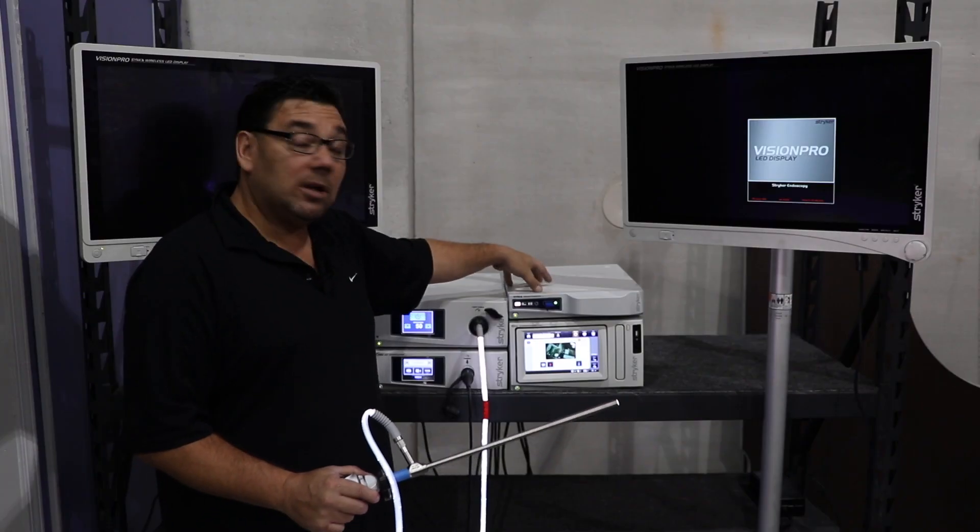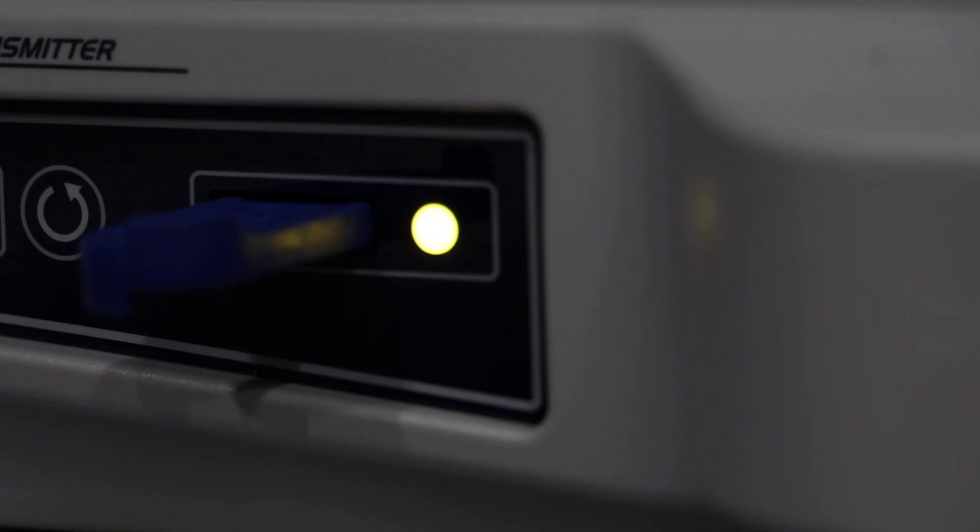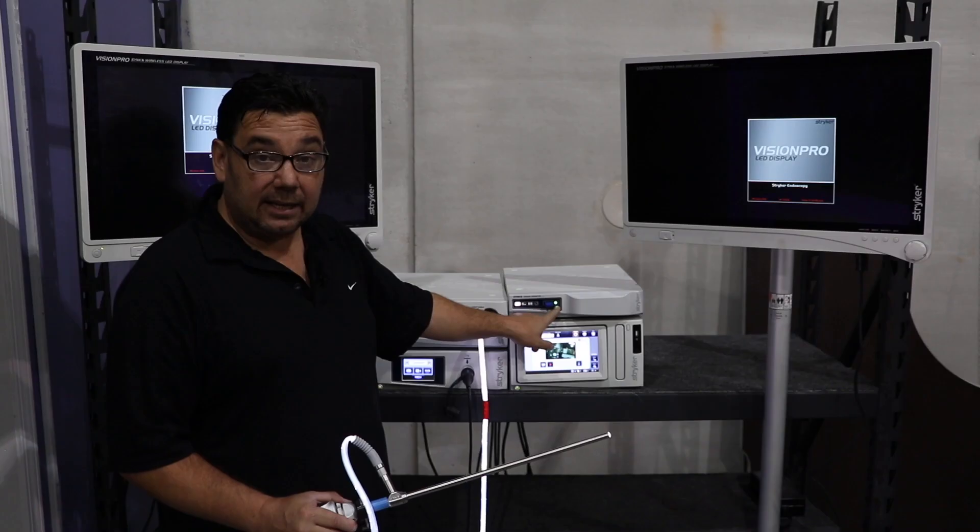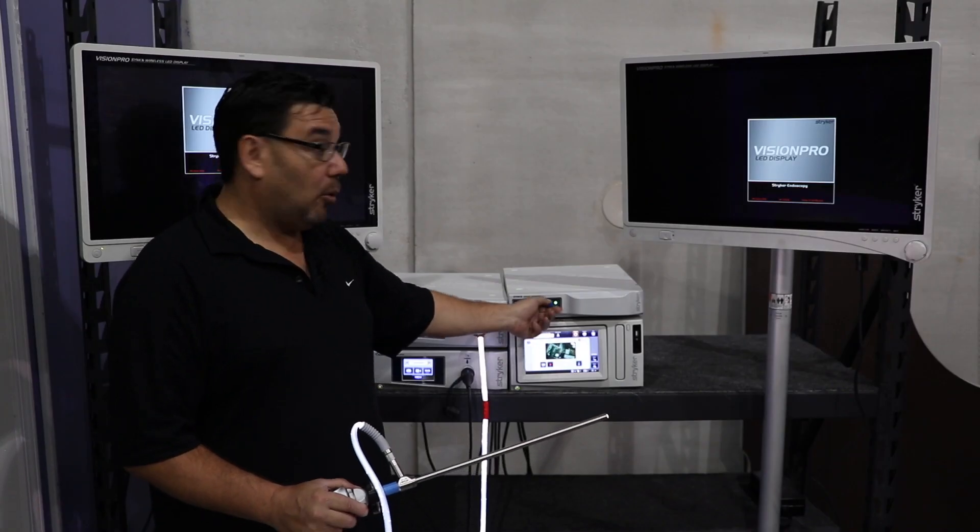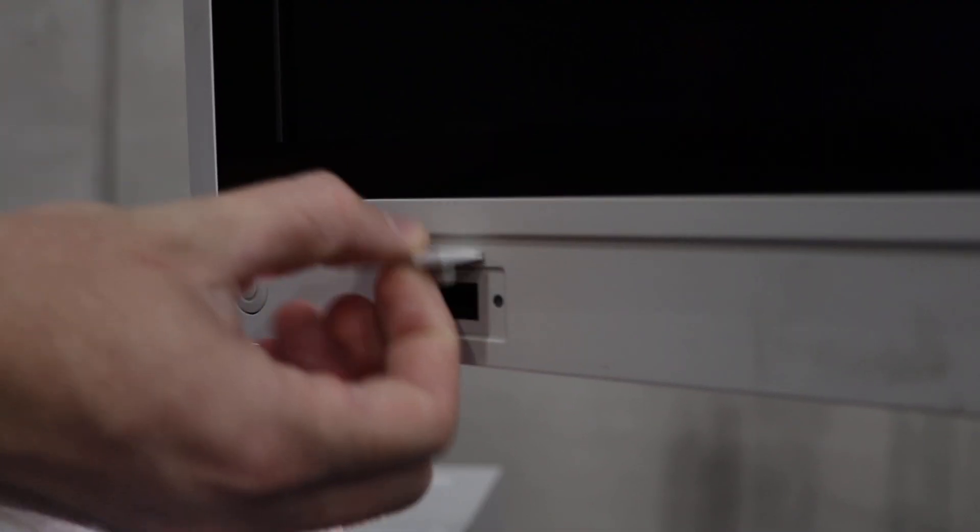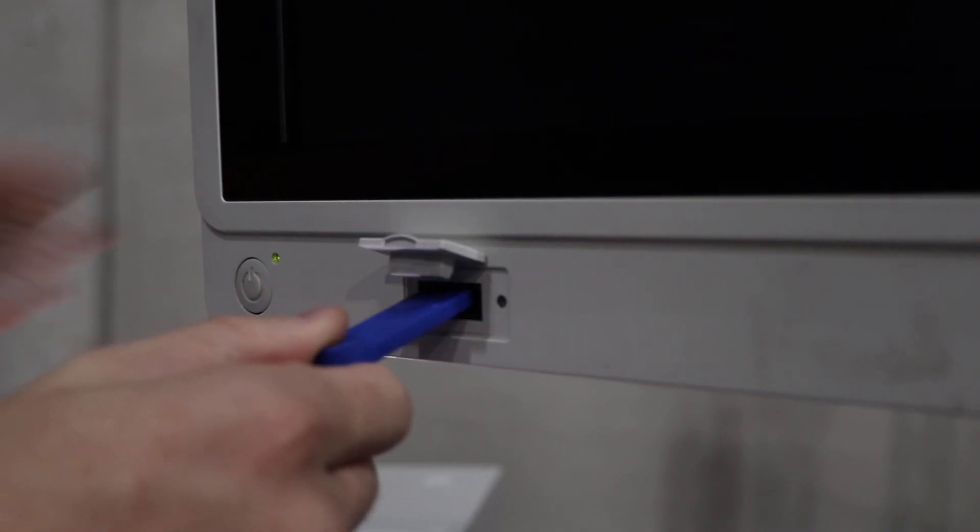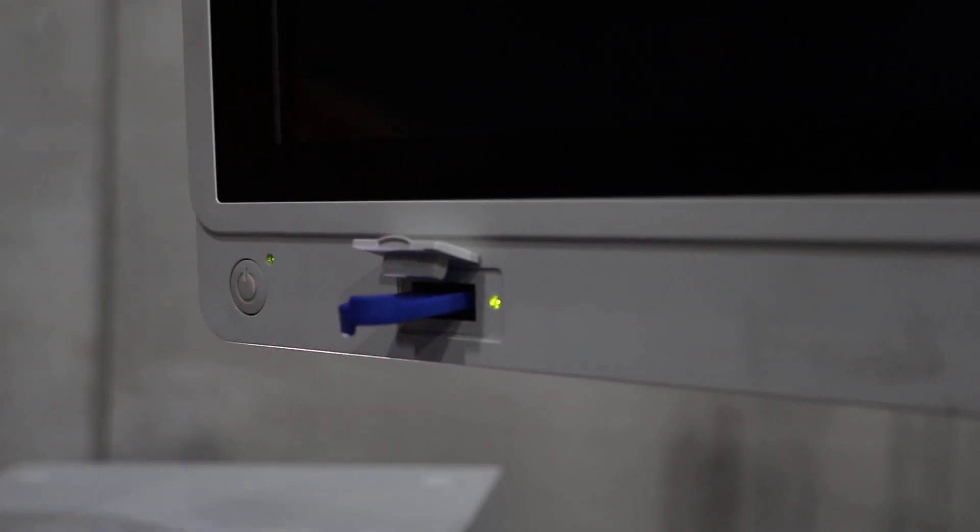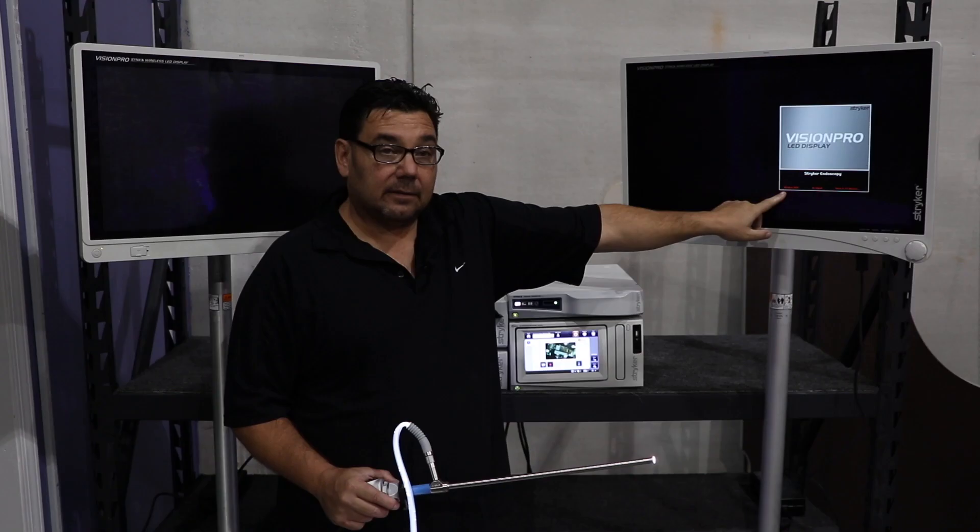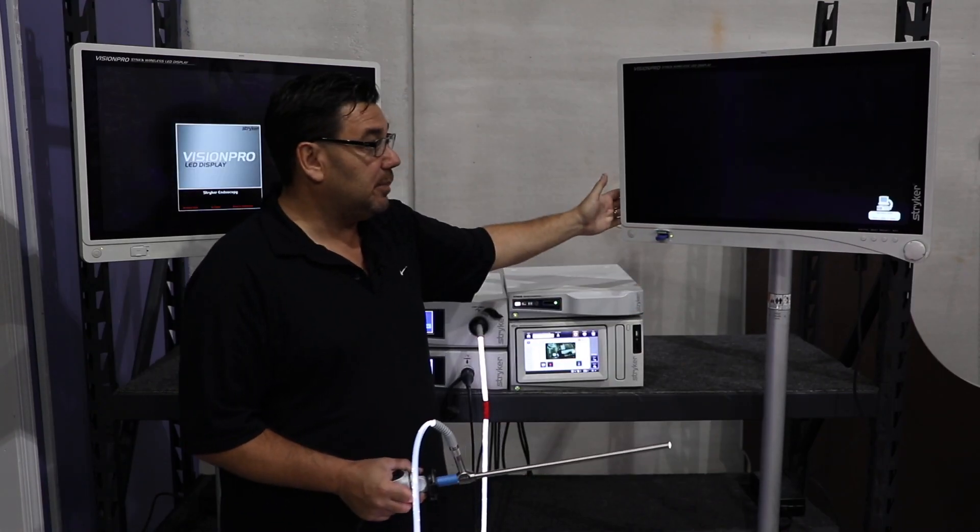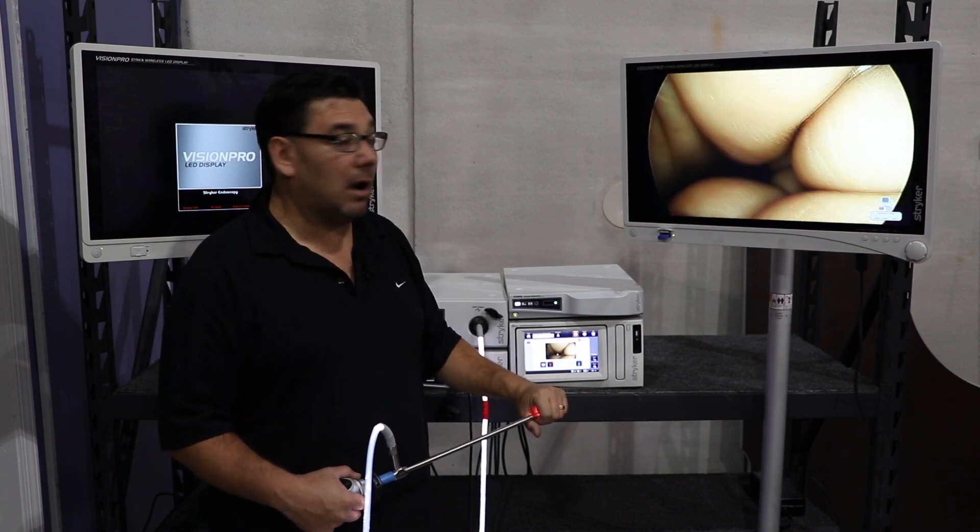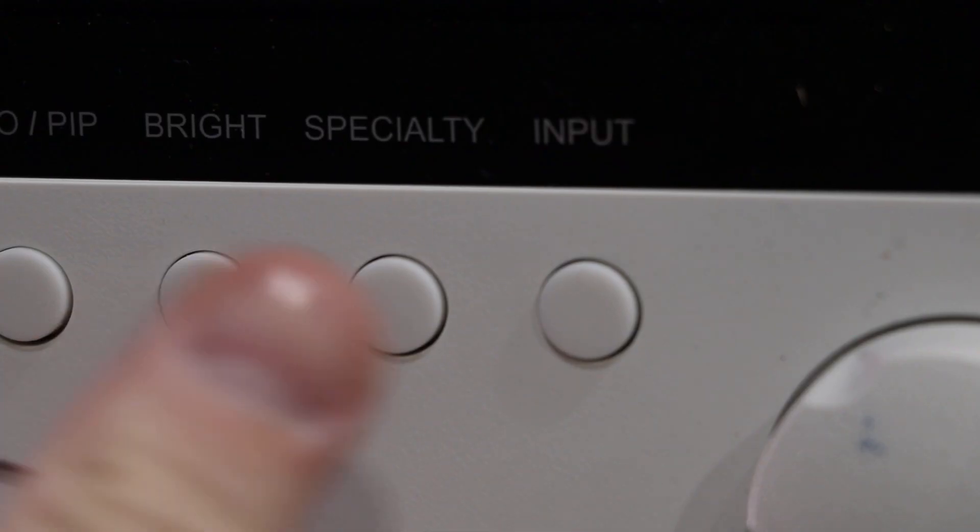Once it stops there, you'll be able to get the green light, pull the key from there, come to your monitor and plug the key in. You'll get a green light, it will connect, you'll hear the beep, and then you'll get the wireless signal.